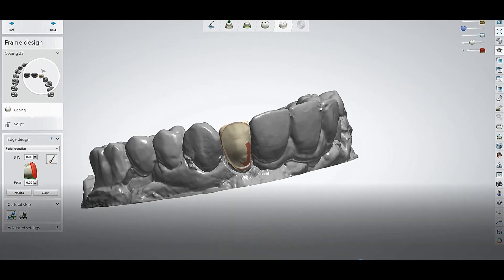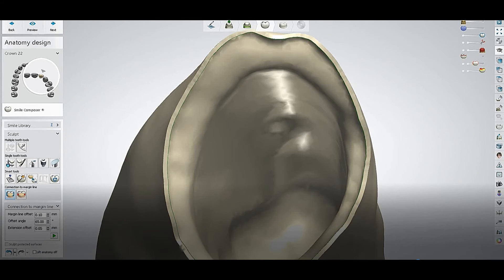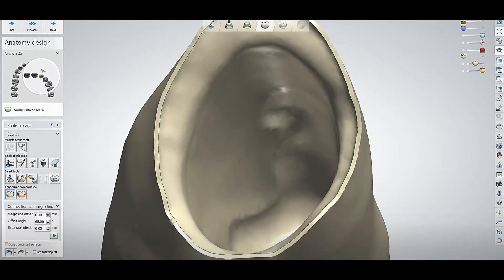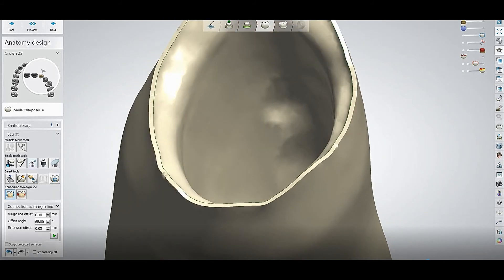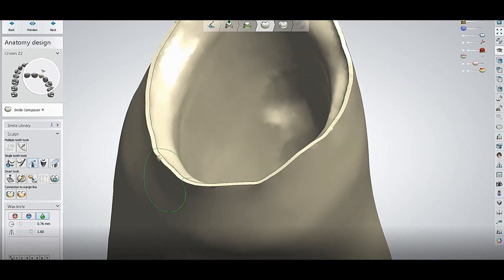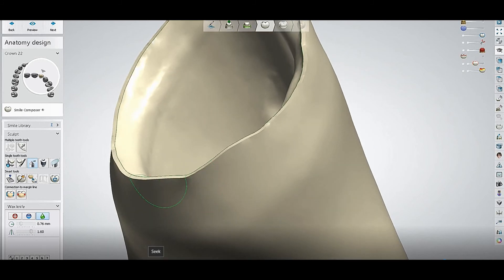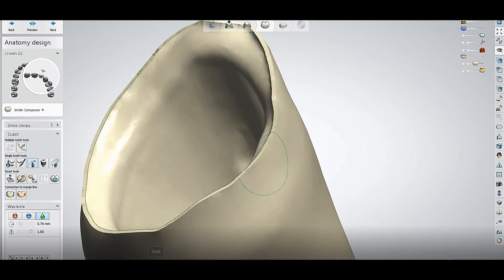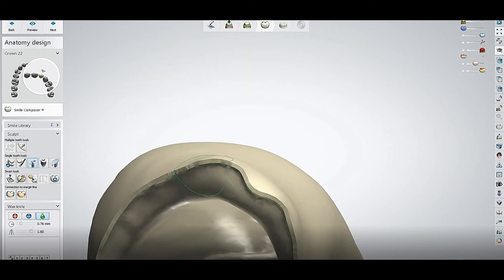This was the easiest solution for this problem. Sometimes you can also smooth the margin line with the smooth tool — just select it and apply it on the margin, and you will find it can smooth the margin line. Combining both methods, you can get rid of this error.